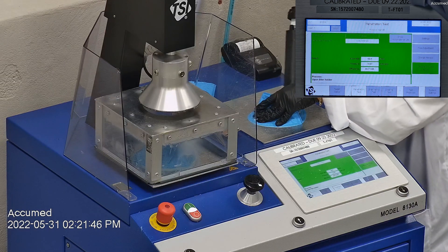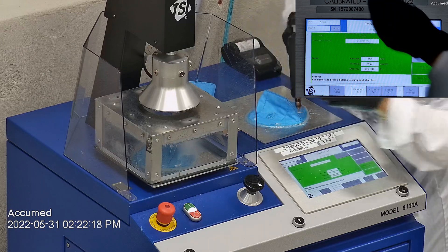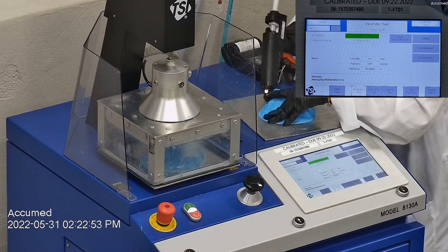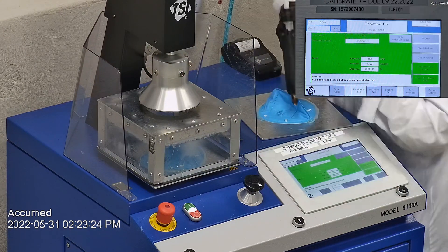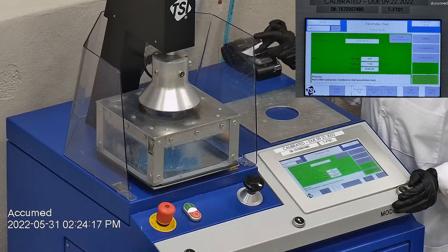The first sample tested at 99.71% filtration efficiency with a pressure drop of 18.1. The second sample had a filtration percentage of 99.82% and a pressure drop of 17.2. The last sample's filtration percentage was 99.56% and had a pressure drop of 17.6. Overall, these masks tested pretty good in terms of filtration efficiency. However, they were a little high in terms of breathability.